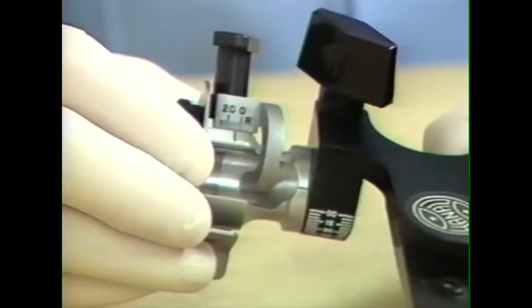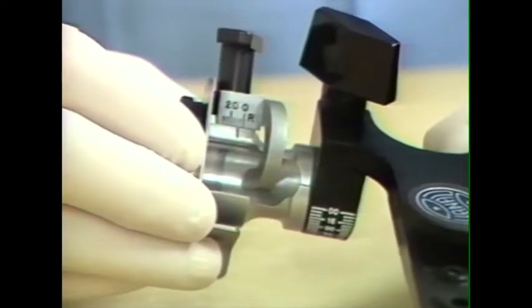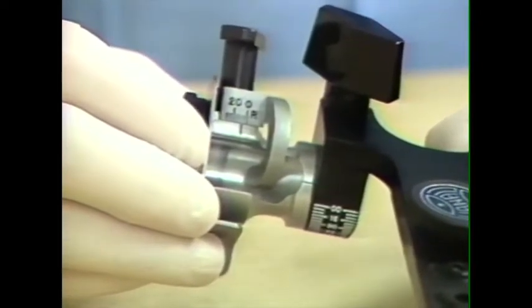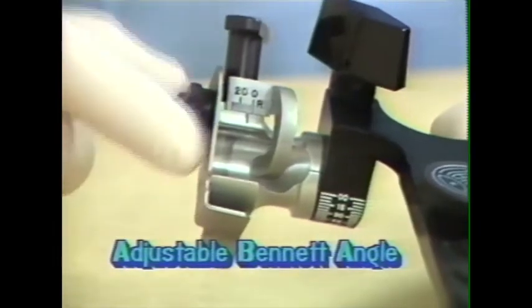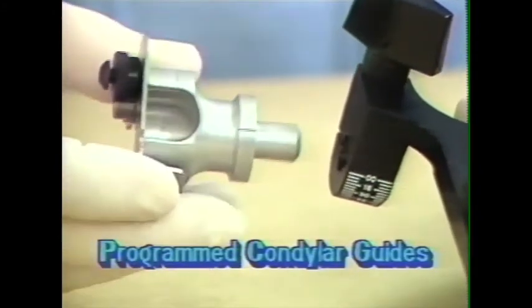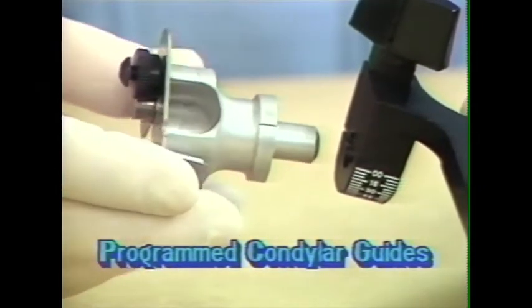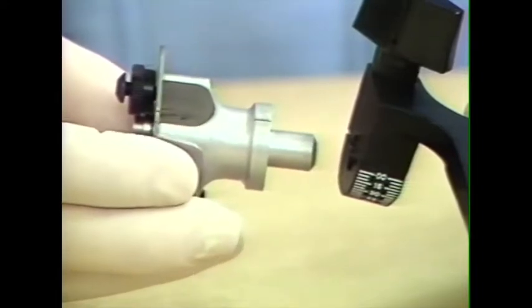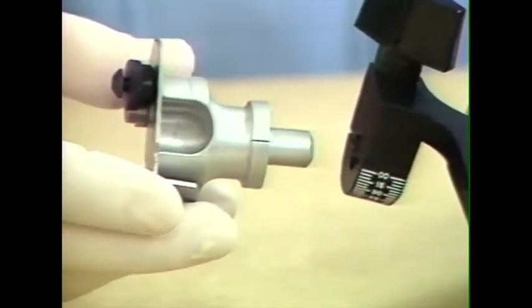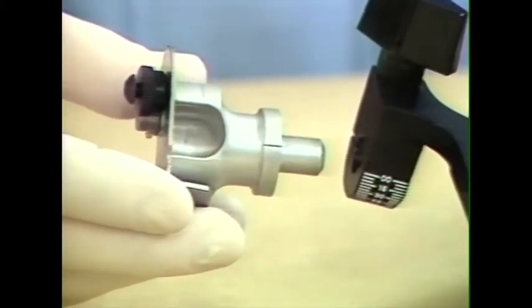There are 4 types of fossa elements available for the Hanau Modular Articulator. The one that we have illustrated before is the one with the adjustable Bennett angle. And the second type that is available is the programmed fossa, in which a certain degree of Bennett immediate side shift has been programmed into the fossa element. There are various choices of curvatures and immediate side shifts available with this element.